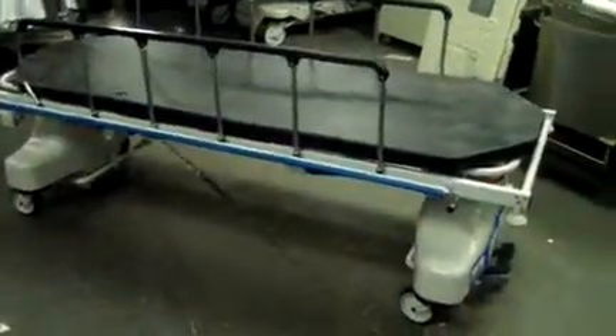Hey, it's Keith from DCSP Medical. We're looking at a Stryker 1080 fluoroscopy table set up so you can get a full C-arm under there. Both ends adjust up and down — we'll get a look underneath there.